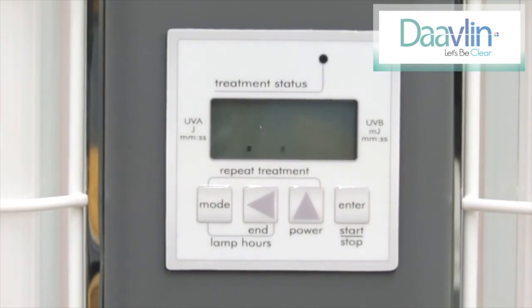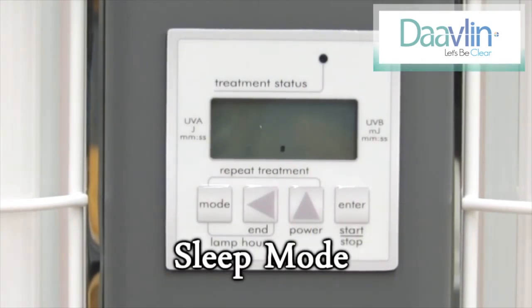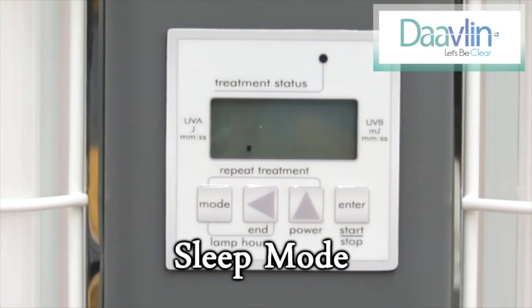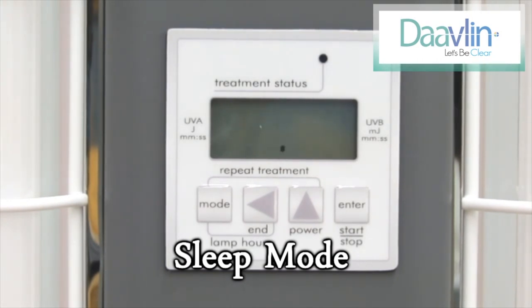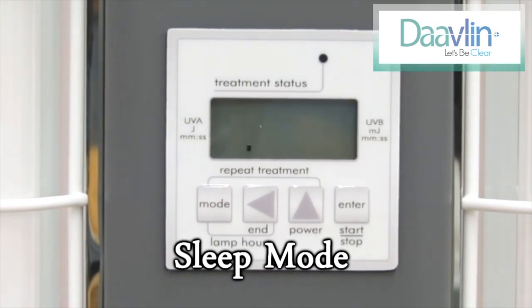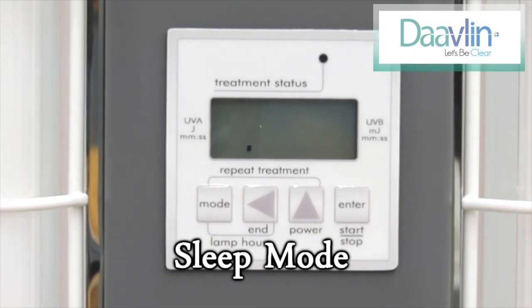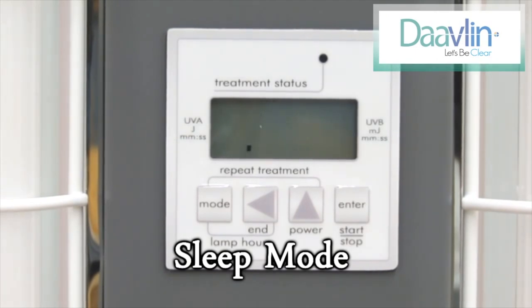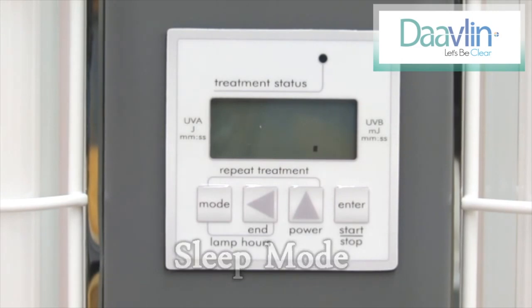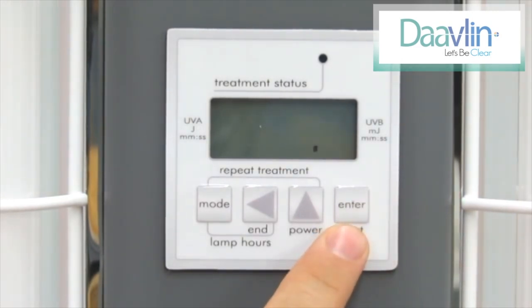The device will always start in sleep mode. Sleep mode may be represented by a dot shifting back and forth across the screen, or for units equipped with FlexRx, a numerical representation of your remaining exposures. To bring your unit out of sleep mode, press the enter key one time.